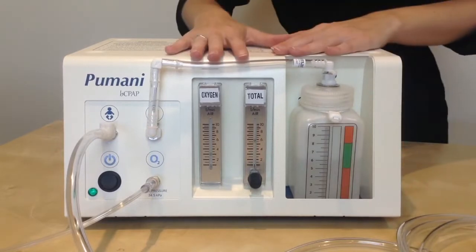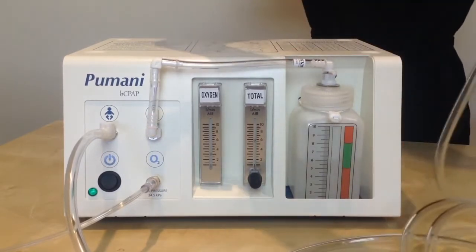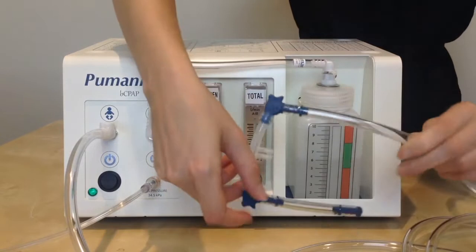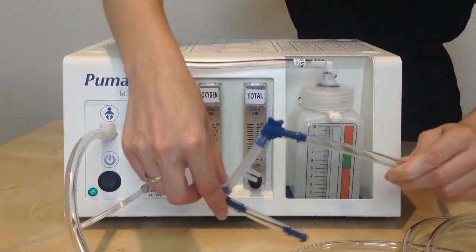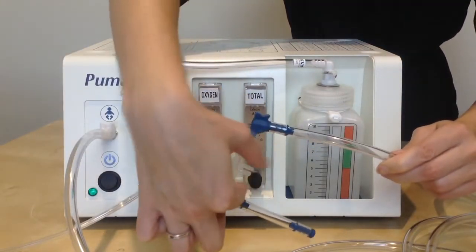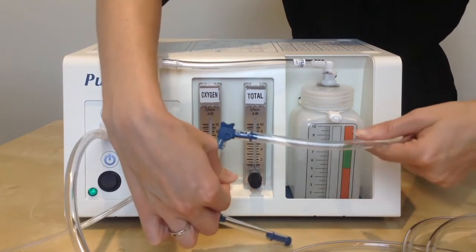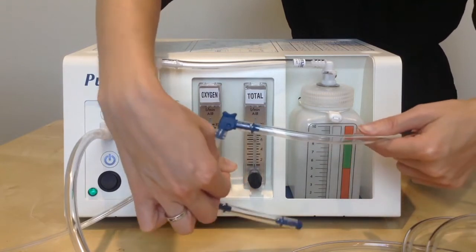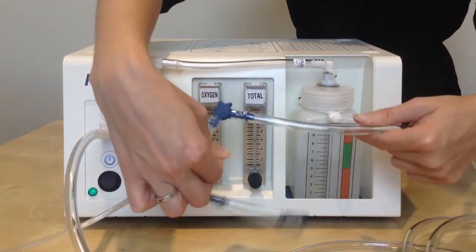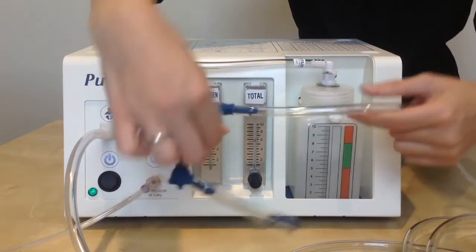Now that I've set both of the flows, I will take my patient tubing. On the end of the patient tubing are the prongs, and when you pinch the prongs, you should see bubbling in the water. And you know that your Pumani is now ready to go on the patient.